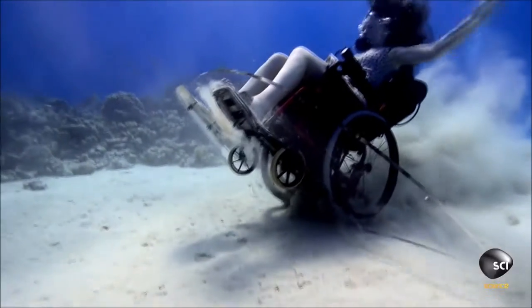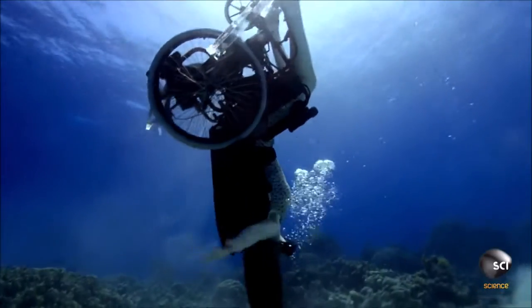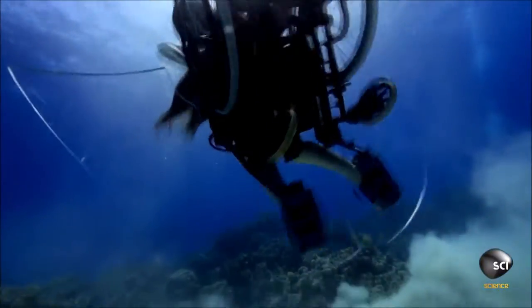At the lowest position she'll do a forwards roll. There is literally nothing I've done that compares with loop-the-looping in the underwater wheelchair. As the chair comes down and round there's this incredible force, so it's very visceral and it did feel amazing.